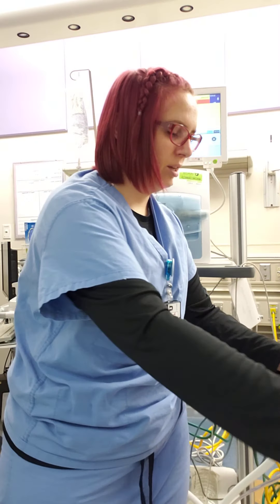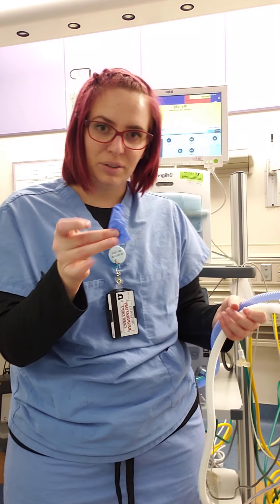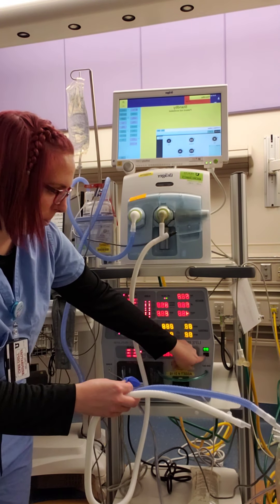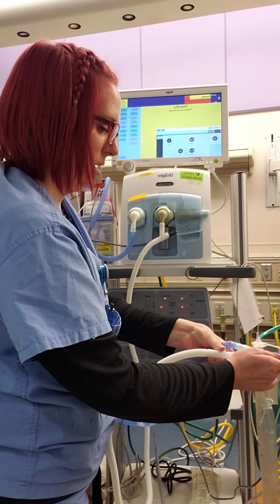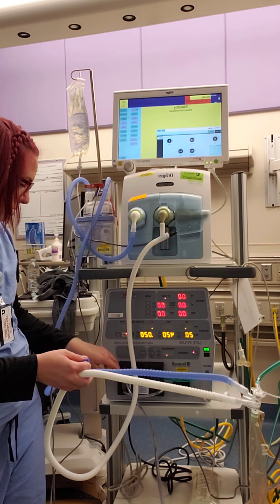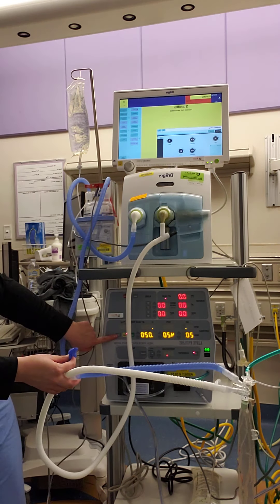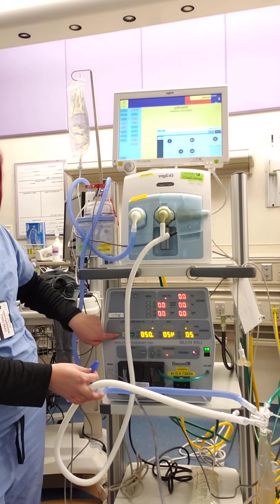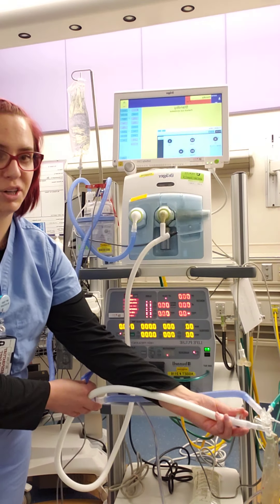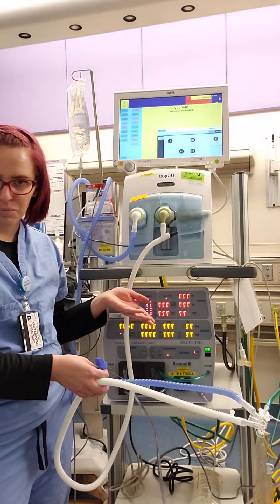We are set up on our jet ventilator. To test it, you'll need the end of a glove to be your little lung. Turn it on — it legit looks like Back to the Future when we set it up. It will alarm to let us know it's working. This test button over here — you never want to press it when it's on a patient, but if you press it beforehand it will run a test on your jet and make sure everything looks great. It tests the numbers on the screen — basically it's just our SST for the Bunnell jet.